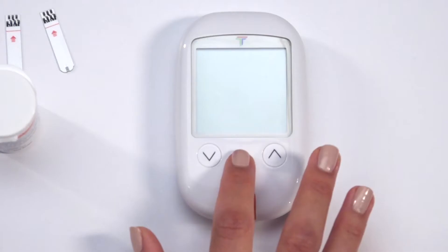To turn on, press and hold the M for four seconds or longer. This will bring you to setup mode.